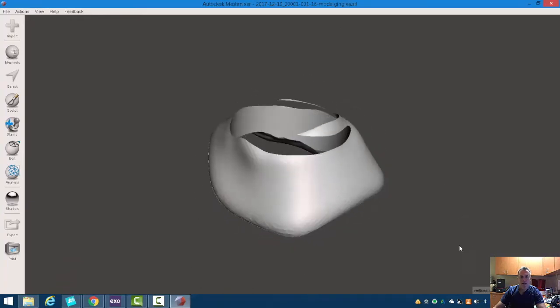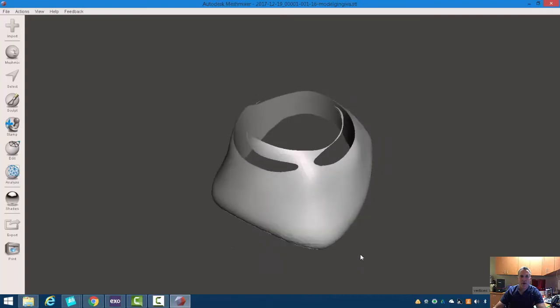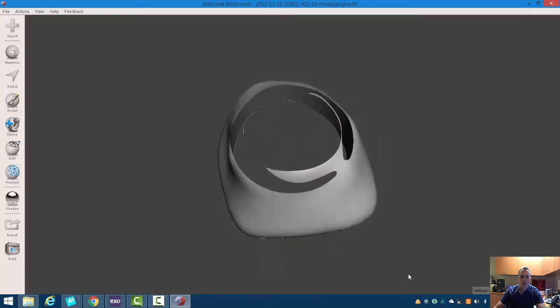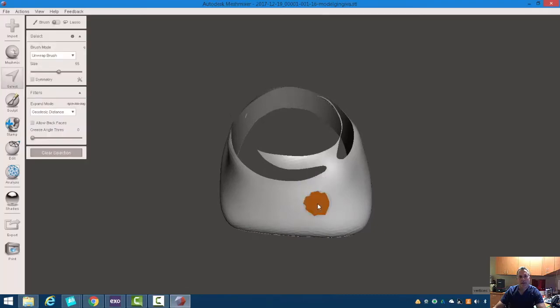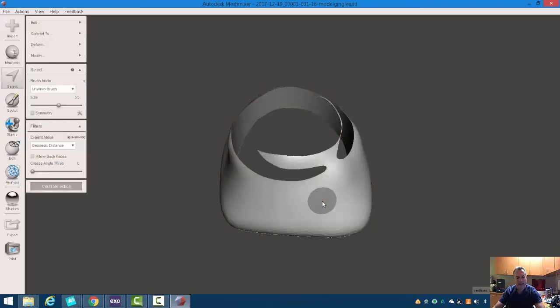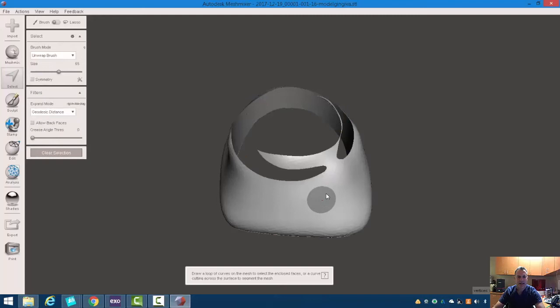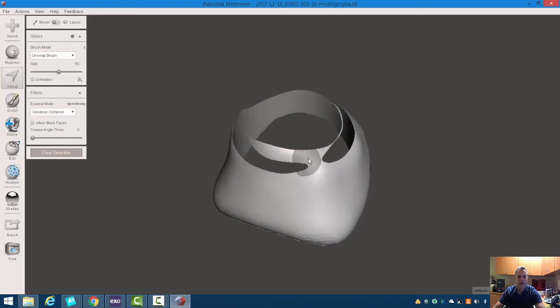And I don't know if that is even printable. What we can do is if you don't want this, you can double click it, and select. You can double click and hit invert to select that little bit and X. We can also just sort of get rid of this portion here.